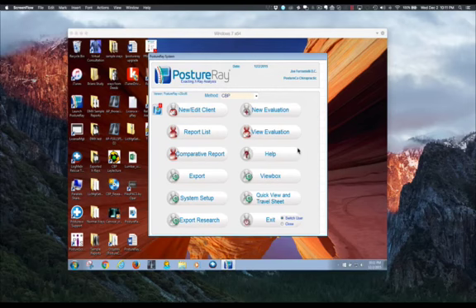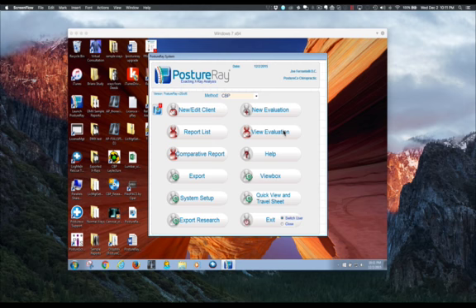In this example, we're going to walk through how to change the report dates if there was a mistake.